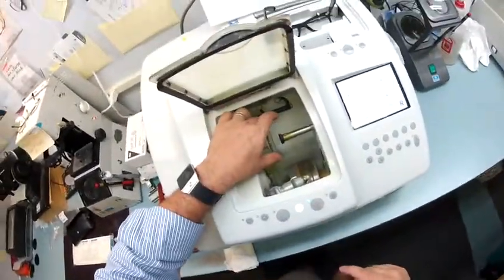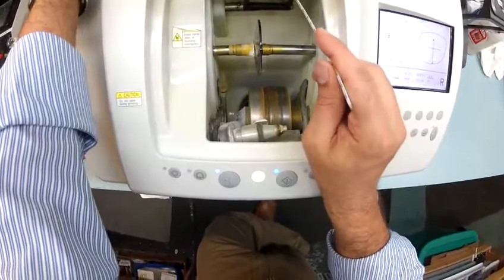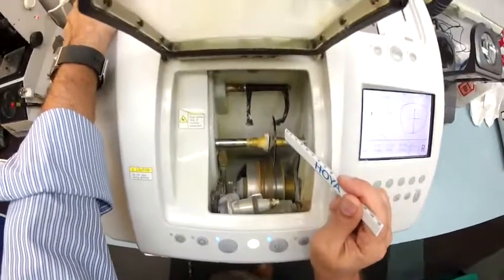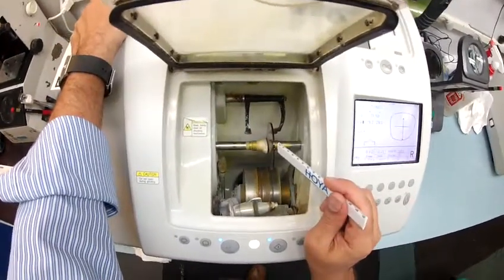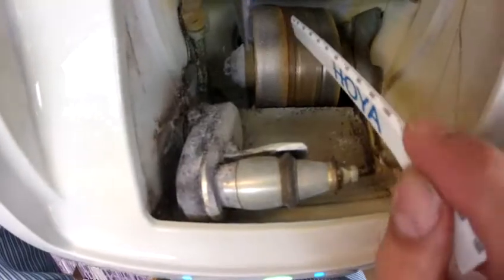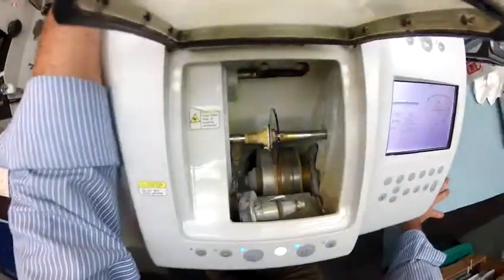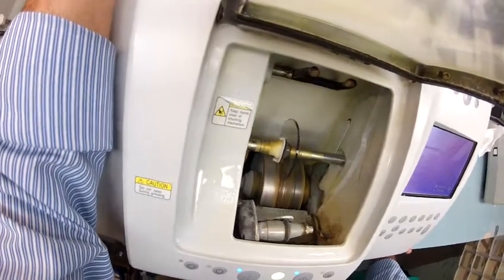Now I'm going to put this into the chuck — or as I like to say, the Charles, because I don't know it well enough to call it chuck. The calipers are going to come down and trace the shape of your right lens onto this lens to make sure it's large enough to cut out. It's starting on the rear surface — the concave surface closest to your eyelashes — then moving over to trace the convex side, the front surface that sits away from the face. The actual cutting wheel is down here on the bottom left; it looks like heavy grit sandpaper and grinds away your lens material. The wheel in the center with that little channel — that valley — is what cuts the bevel onto the lens so it stays inside the bevel of the frame. I'll close the door in a moment, but for now I just want you to see as your polycarbonate transitional lens touches down onto the cutting wheel.